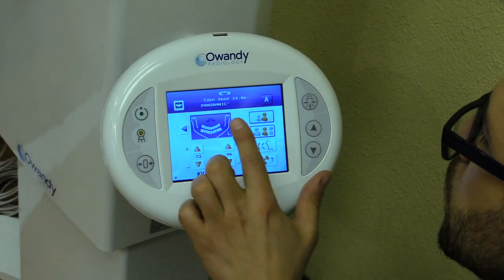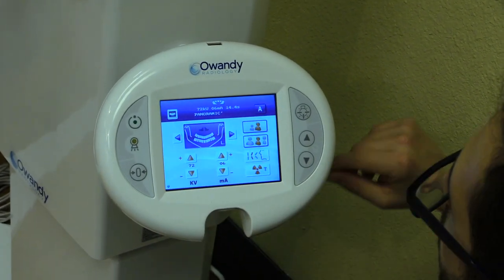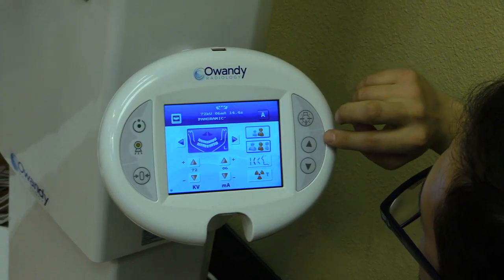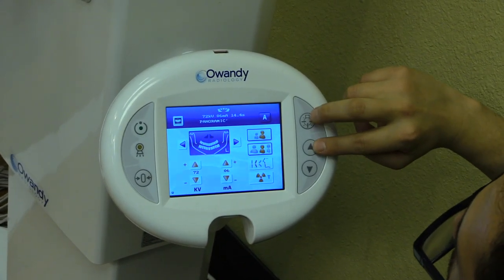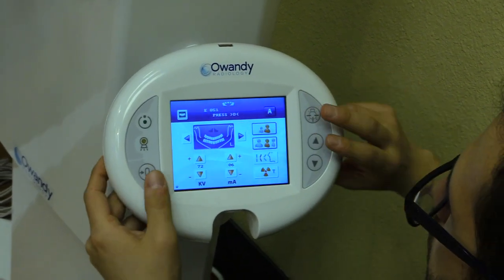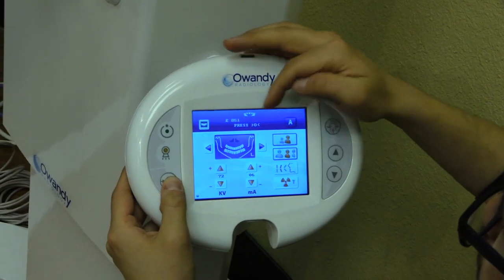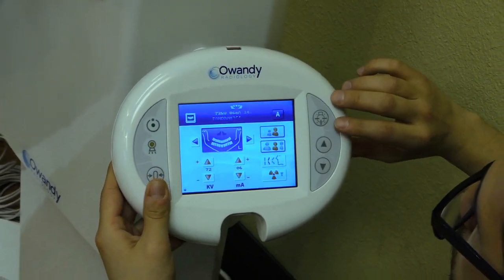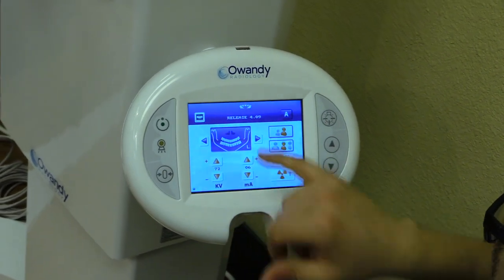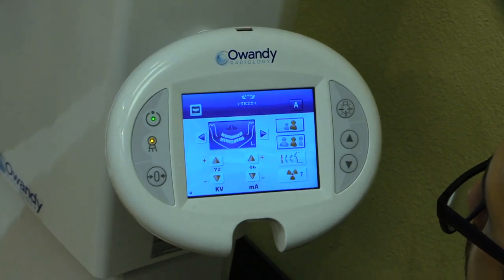Make sure the system is in panoramic mode. While in panoramic mode, hold three buttons simultaneously for about half a second: the up arrow, the laser, and the zero button. If done in the wrong sequence, it'll display 'E 851 — press zero,' so just press zero and try again. If done correctly, it will show the firmware and then go into the system configuration menu.